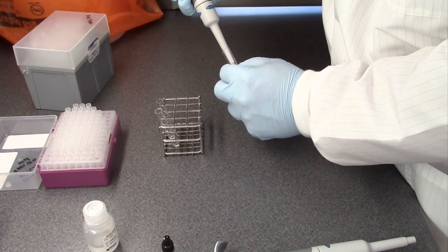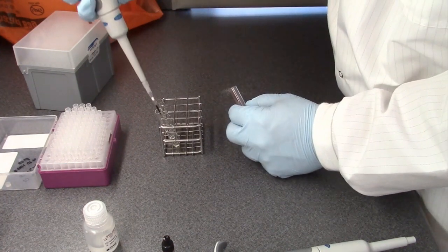Add 20 microliters of the patient sample or control to the properly labeled tubes.